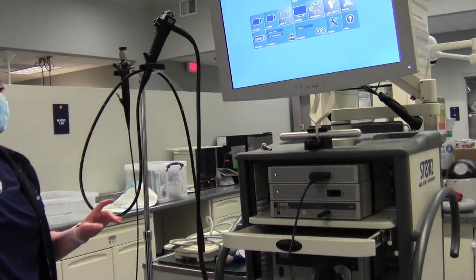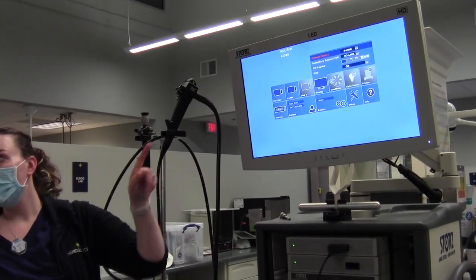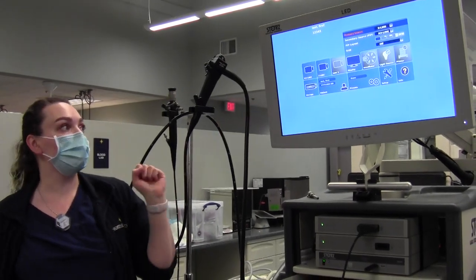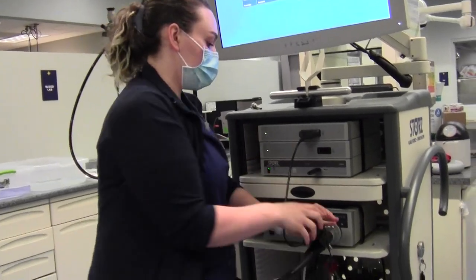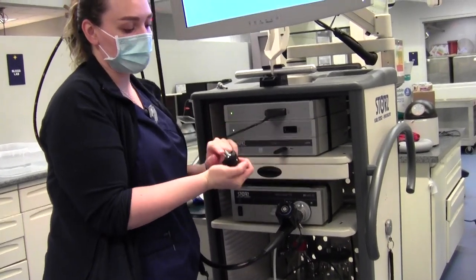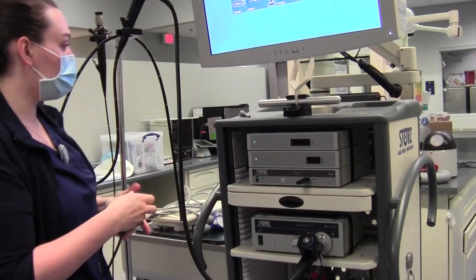If you don't get a picture, most likely your display setting is incorrect. One of the first things you should know is to switch your primary source because it's probably wrong. To remove the scope, you just simply pull it straight out — no twisting and turning, because that's how our pins broke. You literally just pull it out when you're done using the scope.